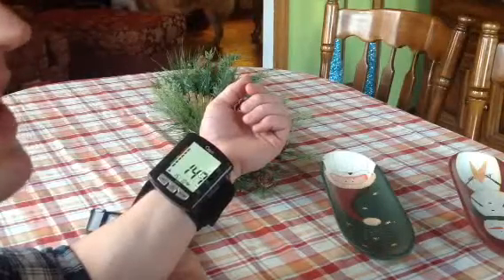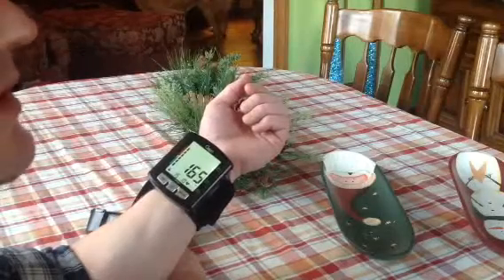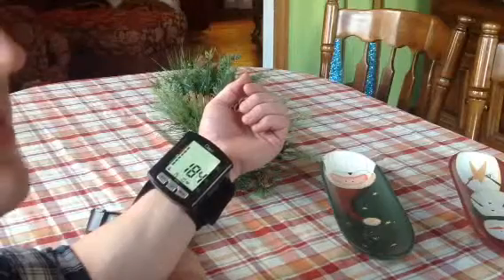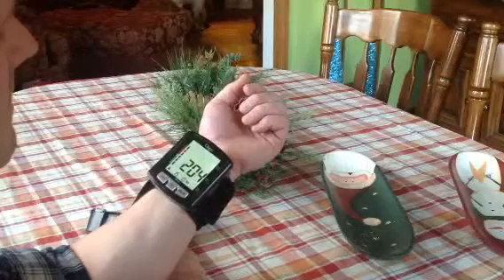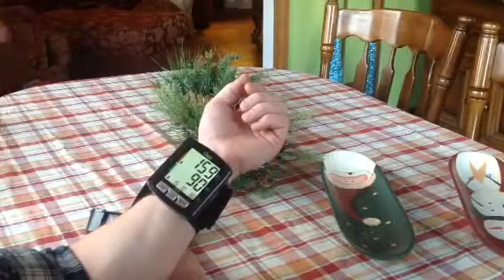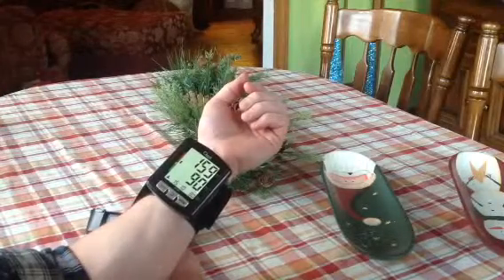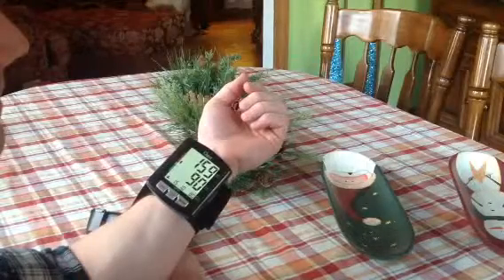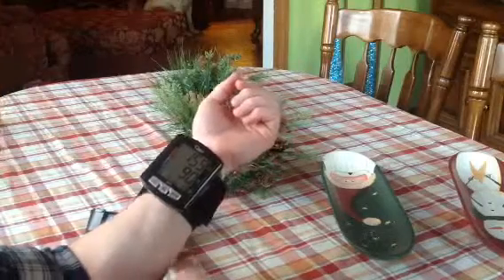I've been running a little bit high, and I decided to use my own arm instead of someone I know has perfect blood pressure, because you get to see the warning they tell you. Your blood pressure and pulse rate are displayed on the screen — higher than I thought. According to the World Health Organization standard, your current blood pressure level may indicate mild hypertension. And there you have it.